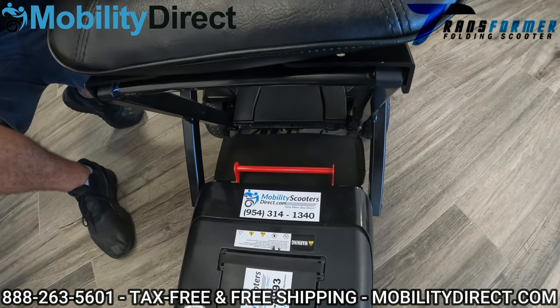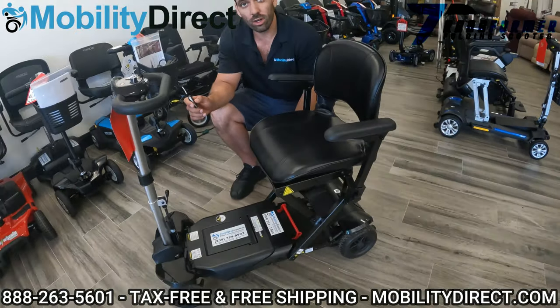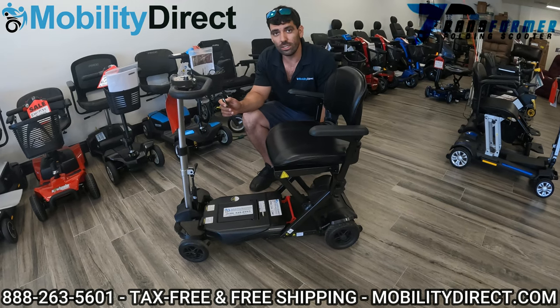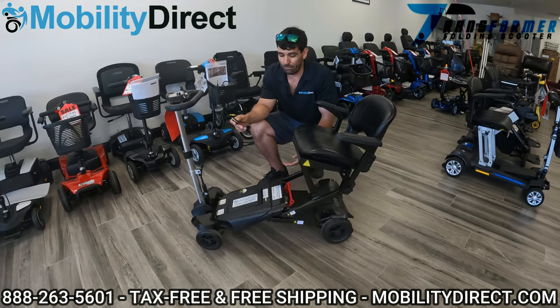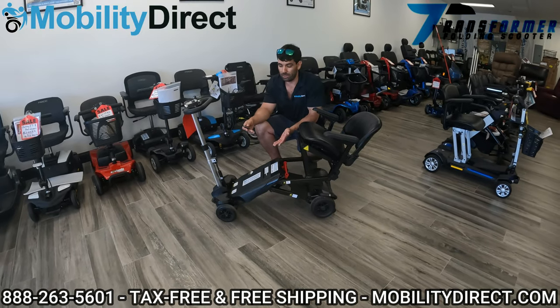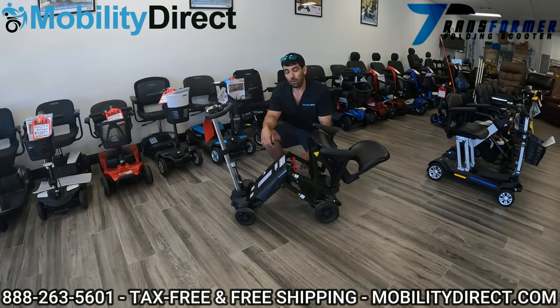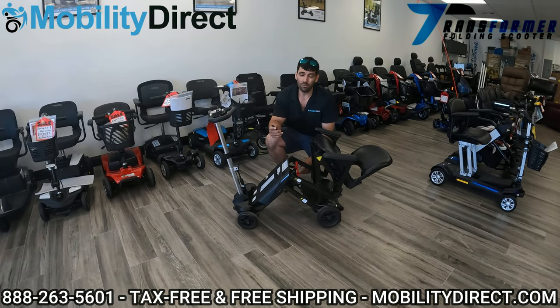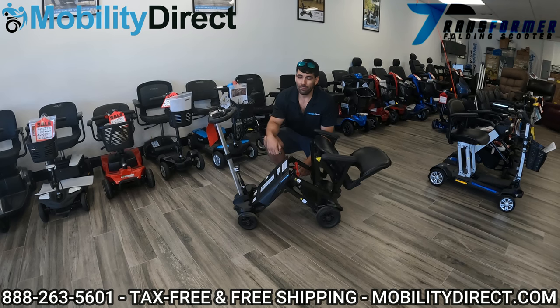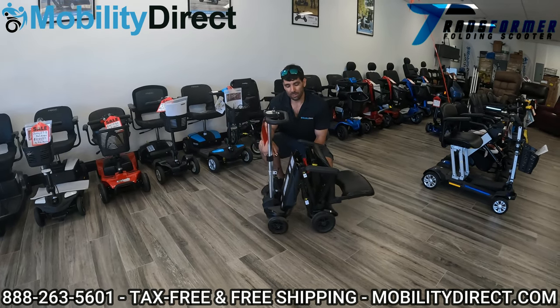So now if I hit this remote control, it's locked into place again and it's working. And that's the solution — super easy to do. It can be frustrating if you just bought your scooter and you think it's broken, but the reality is it's not broken, it's just unfortunately operator error. But don't feel bad — everybody does it. We get calls like this all the time, and that's why we're making this video.